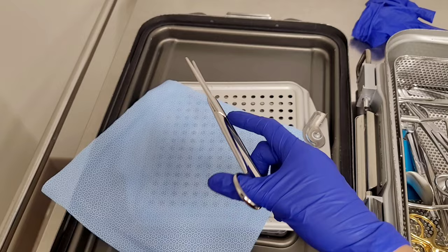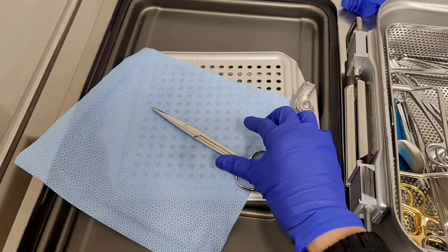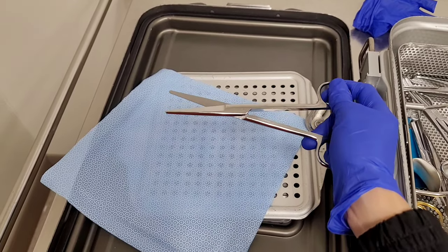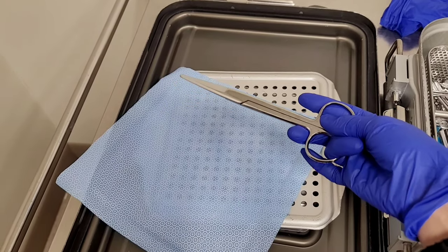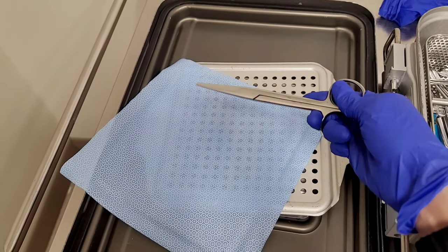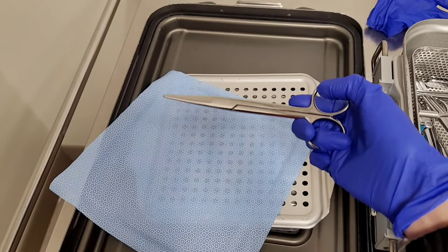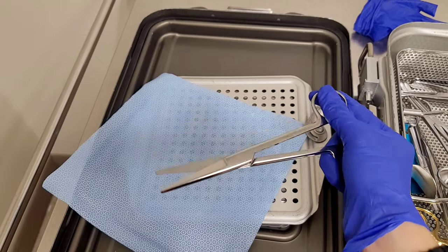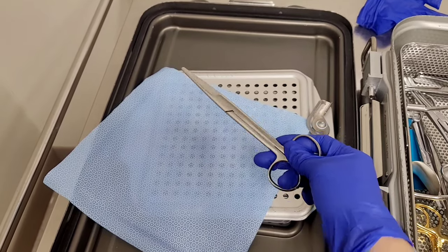Now I'm going to show you how a surgeon who is preoccupied cuts the suture with his left hand — the easy way. You grab it and go like this — this is how they cut it sideways. I don't know how this is comfortable for them, but sometimes this is how they cut it. They said it's better like this when you're occupied. I don't use this method because I'm not used to it, but sometimes if my right hand is preoccupied I would do it on my left hand.